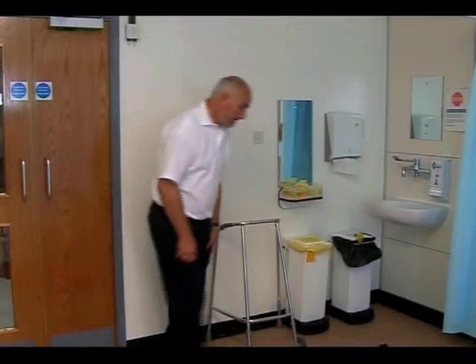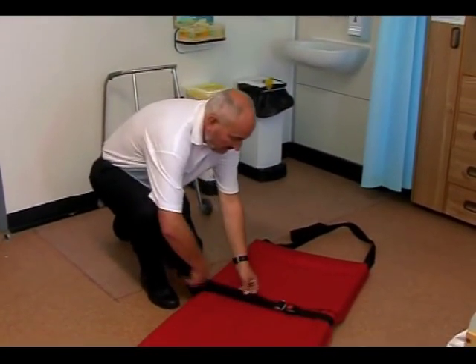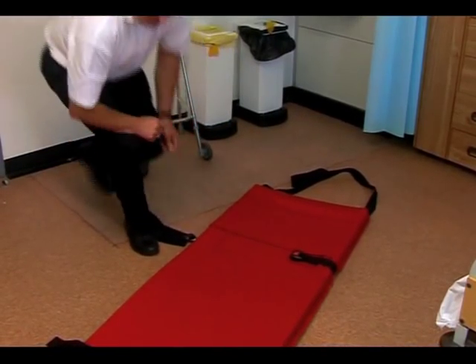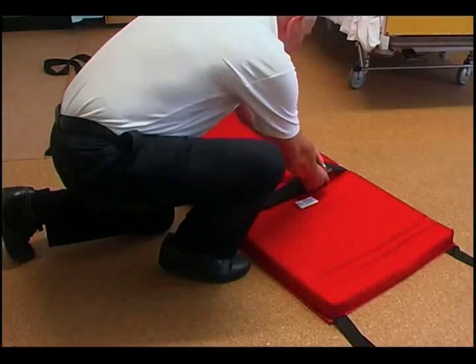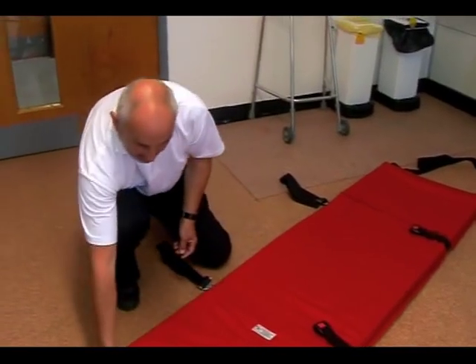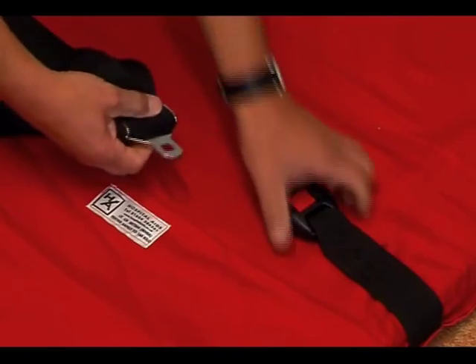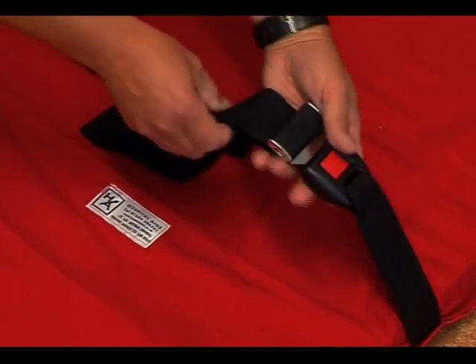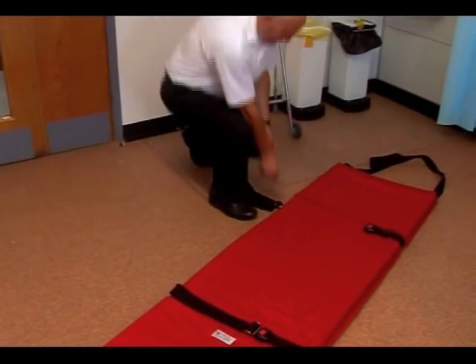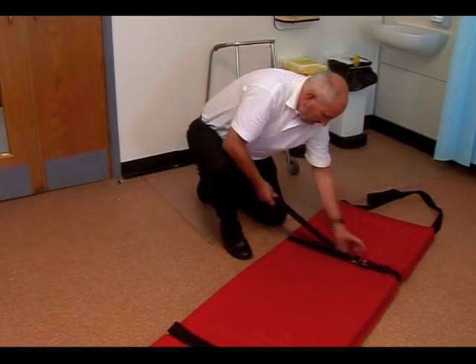The ski pad is a symmetrical device designed for the evacuation of patients or residents, usually where mattress evacuation is not an option due to narrow corridors or staircases. It has adjustable cross straps similar to those used on an aircraft, and high-quality buckles which are specified for use in the National Health Service. There are pockets at either end to enclose the feet of the patient or resident where a vertical evacuation may be required. If time allows, pillows or bedding may be placed in the top pocket to provide support for the head or neck where appropriate.